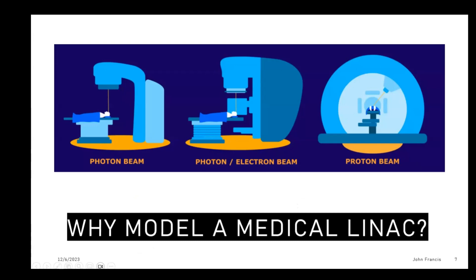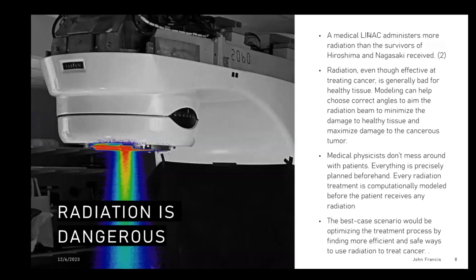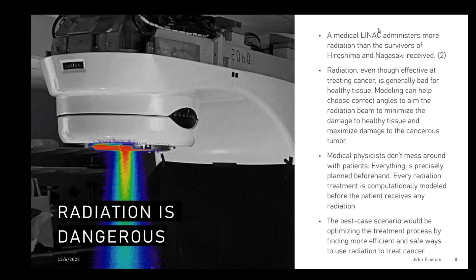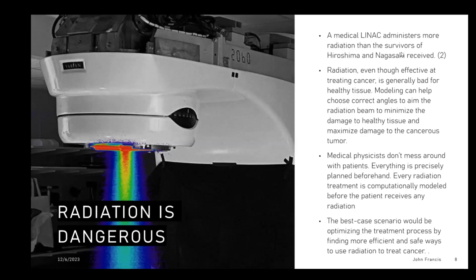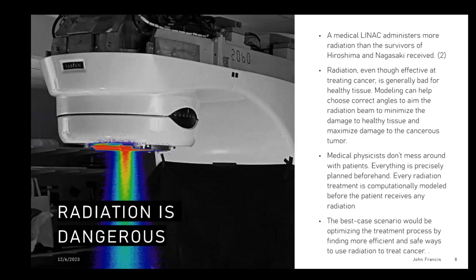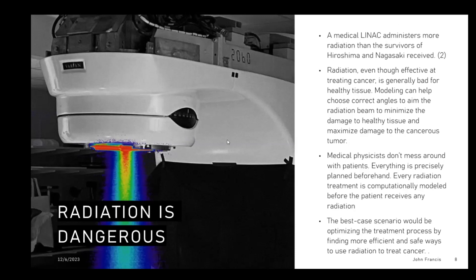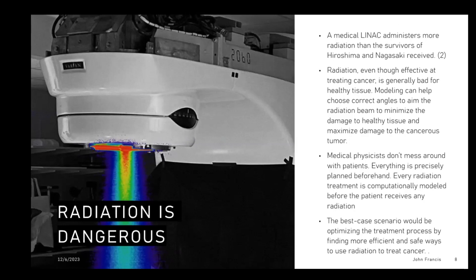So why model a medical LINAC? As we all know, radiation is very dangerous. The amount of radiation that medical LINACs produce is pretty extreme — comparable to the amount of radiation found in survivors of the Hiroshima and Nagasaki bombings. In fact, every single radiation treatment is modeled computationally before it's given to a patient. They want to make sure they know exactly where the radiation is going to go, so they don't accidentally irradiate healthy tissue or miss the tumor.